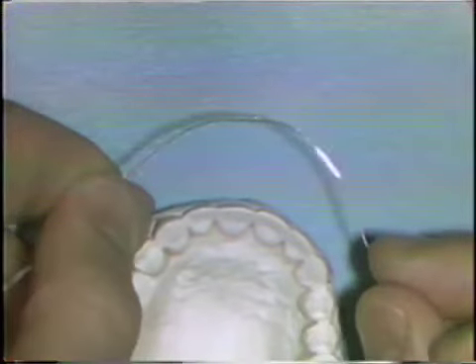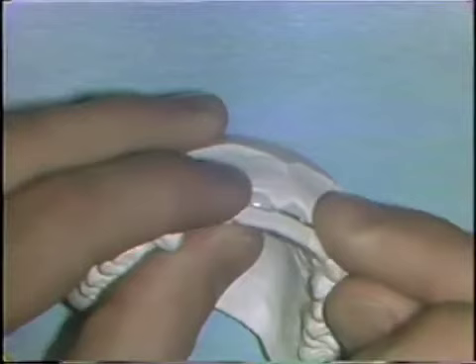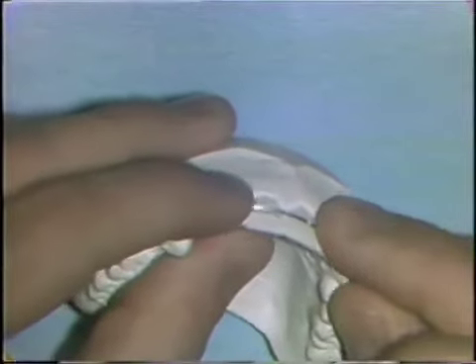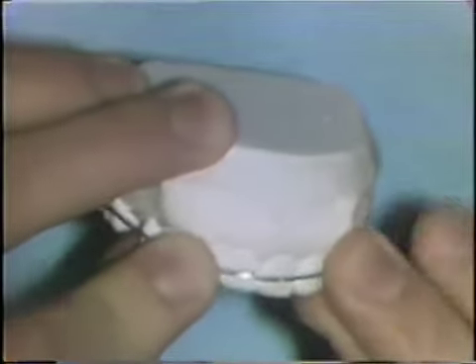The wire has been adapted to each labial surface. It isn't necessarily a half circle — you can see that the wire is not a perfect arc. It is composed of flat sections and gently rounded sections, but there are no sharp bends in the wire, no sharp kinks. It does contact the labial surface of each anterior tooth, and it's in a flat plane of space also.